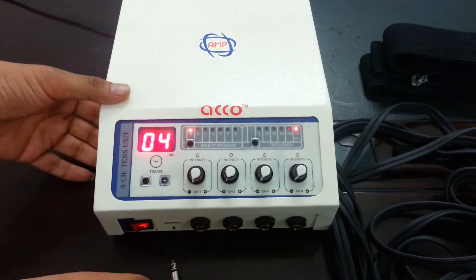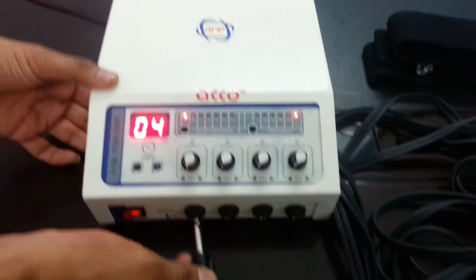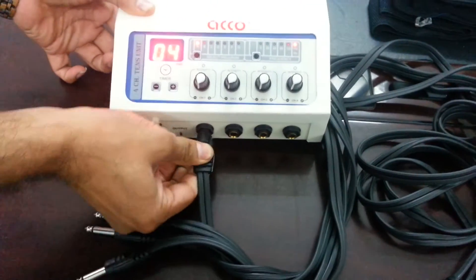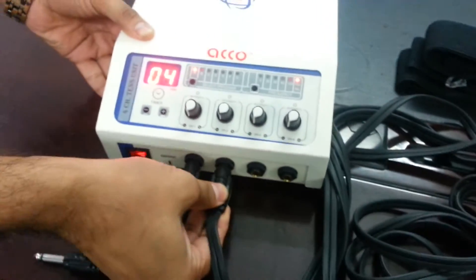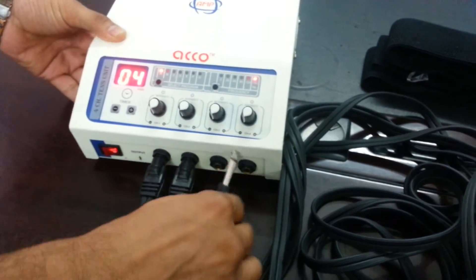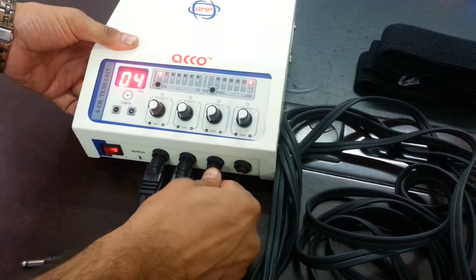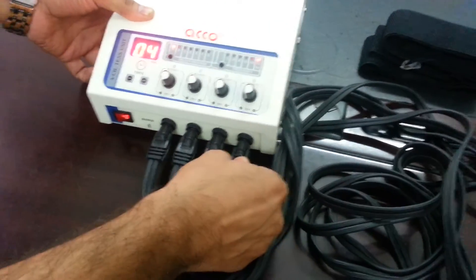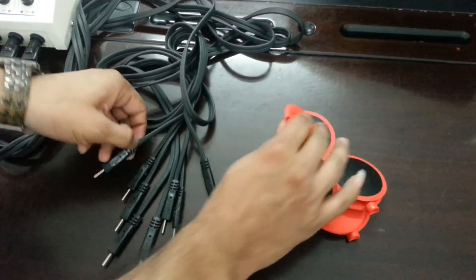Connecting wires: Channel 1, Channel 2, Channel 3, Channel 4. Channel 2 and Channel 4 pairs.